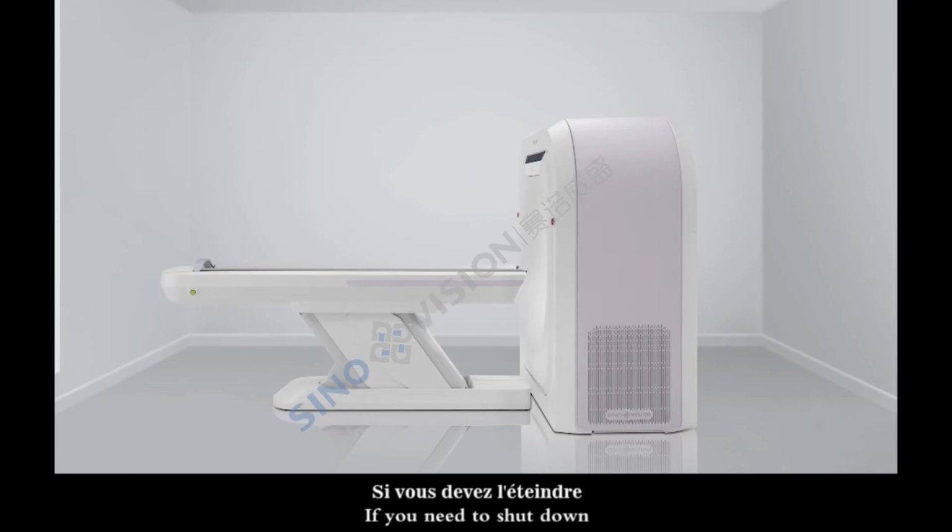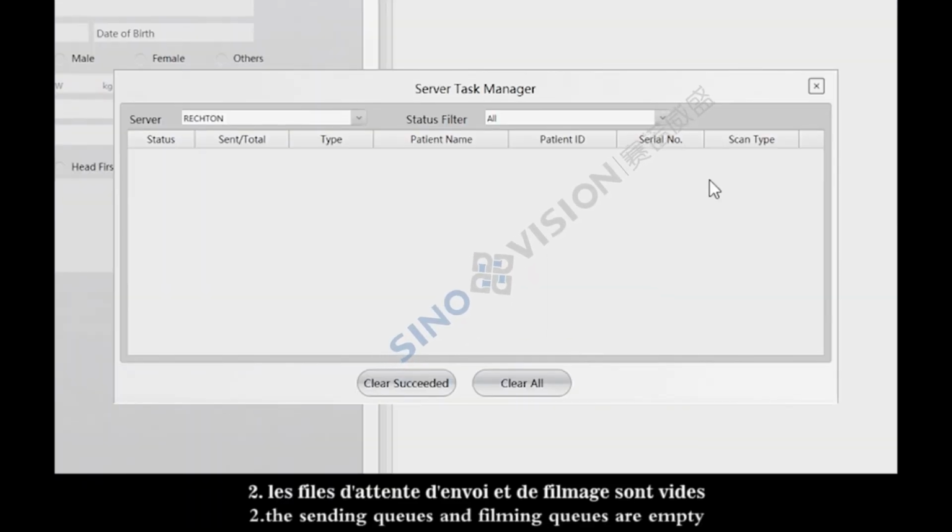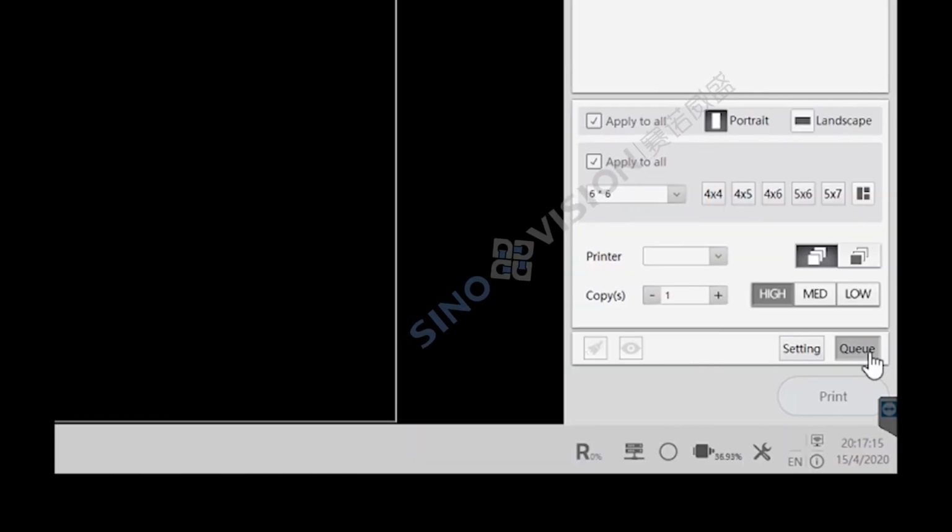If you need to shut down, it is recommended to check that: 1. The patient table is returned to the home position. 2. The sending queues and filming queues are empty.